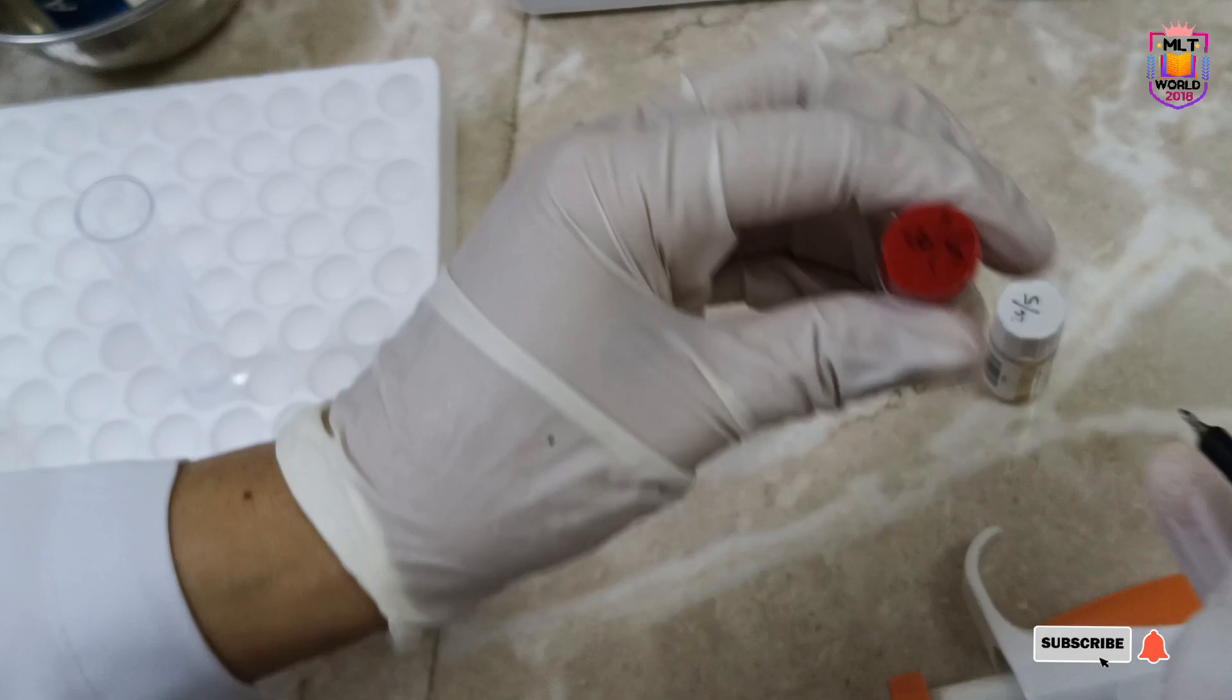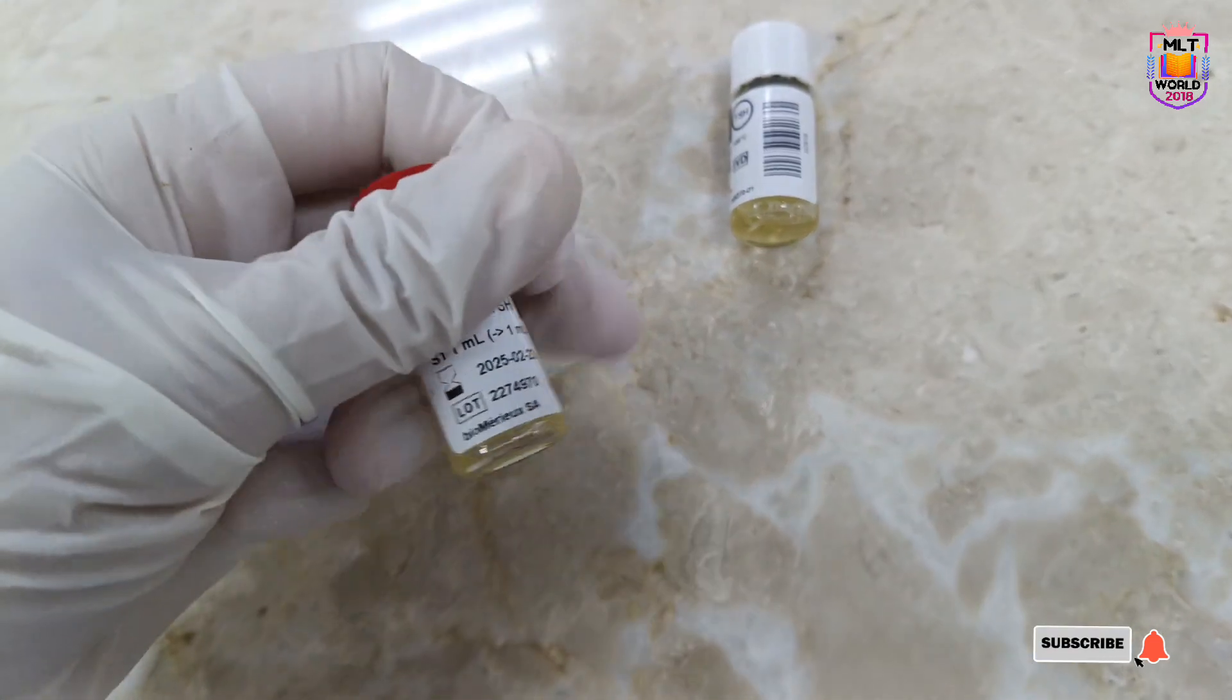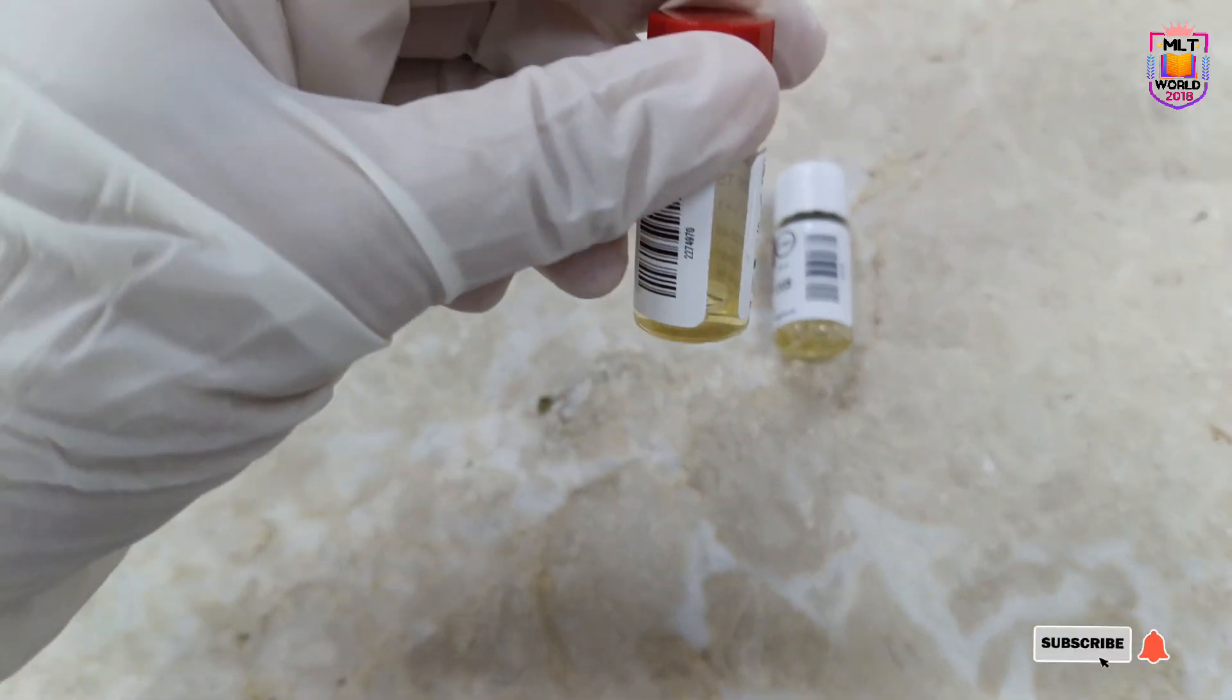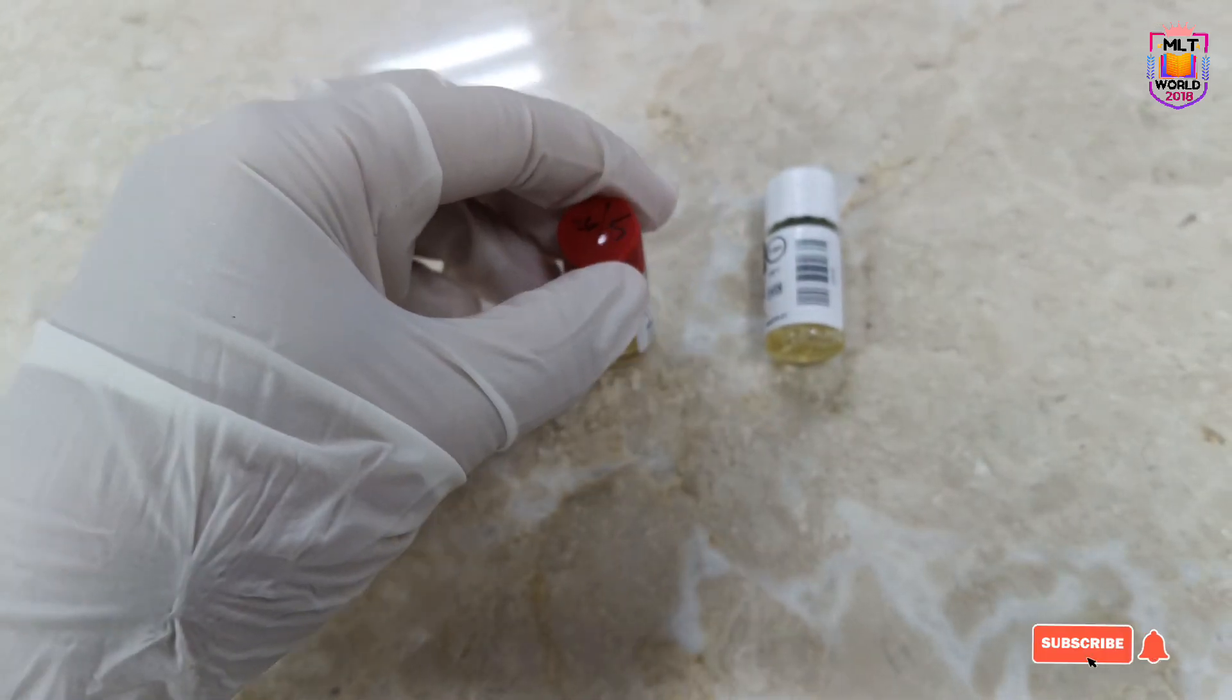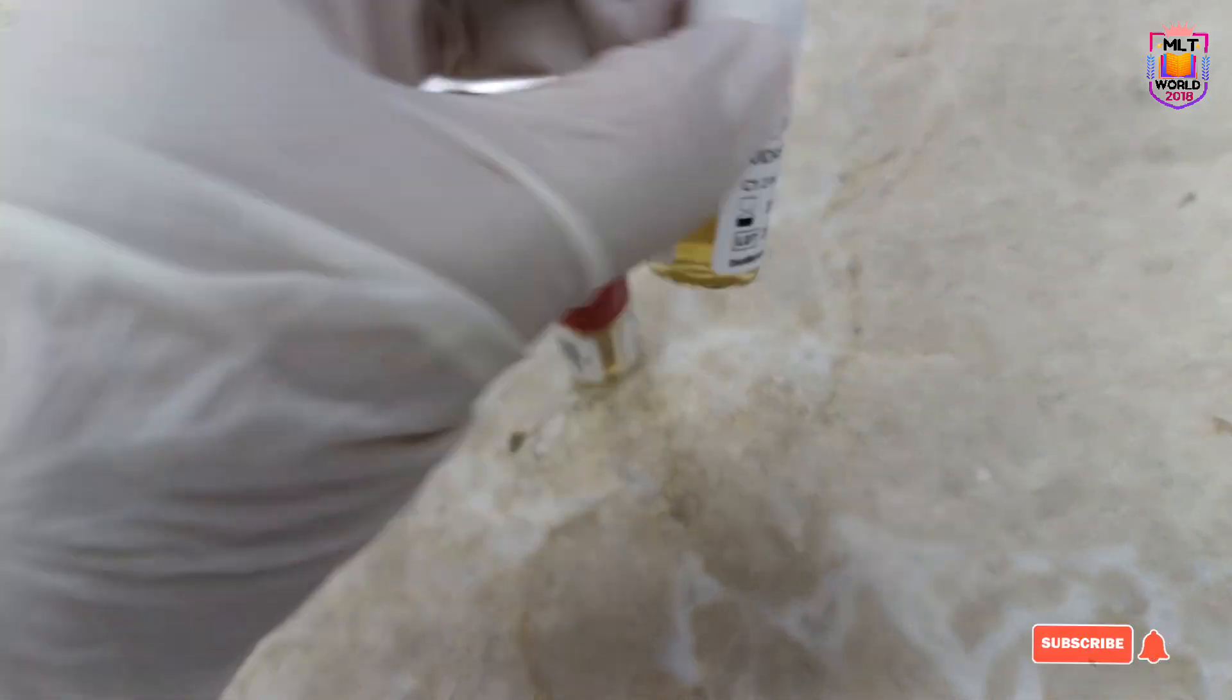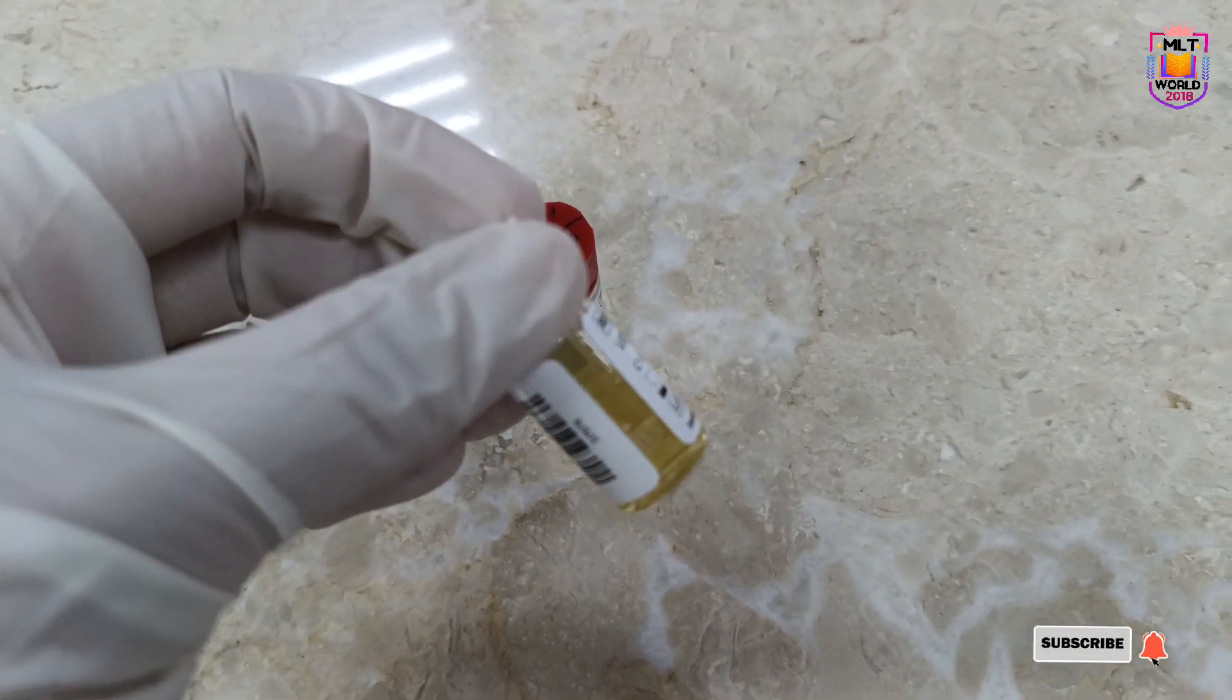After dilution, check how many days we can use this calibrator. Just read the kit literature. It will mention that after dilution, for how many days you can use your control and calibrator. For that reason, you must write the date.